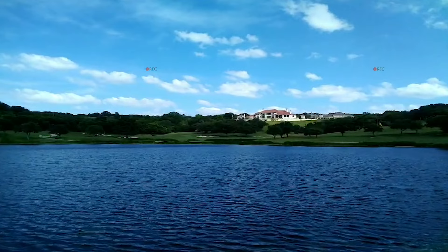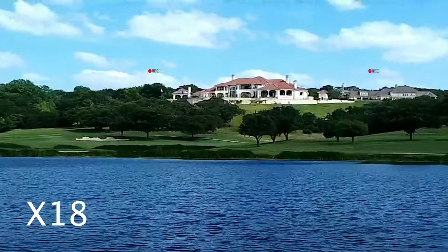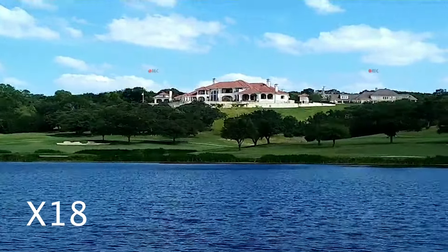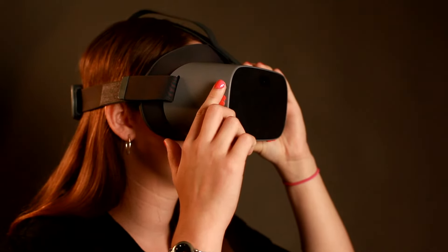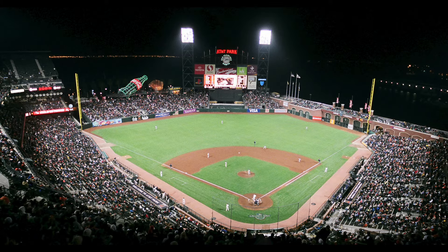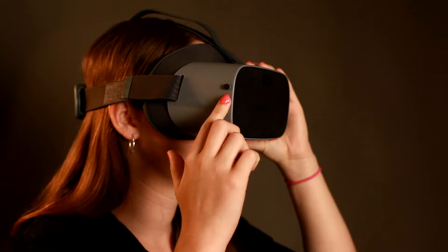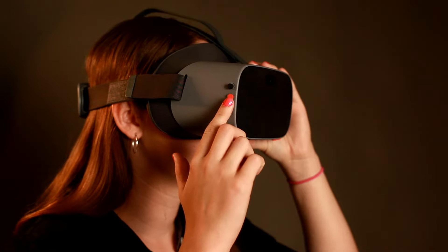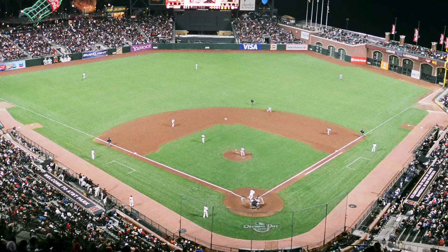The next thing you'll see is your surroundings through the 8-megapixel autofocus camera. The first button above the home button on the remote controls the zoom. You can zoom in up to 18 times by pushing this button, or use the top right button on the glasses. The bigger button under the zoom-in button is the zoom-out button — every time this is pushed, things will appear to be farther away.